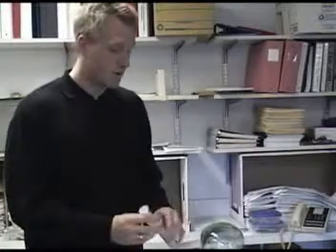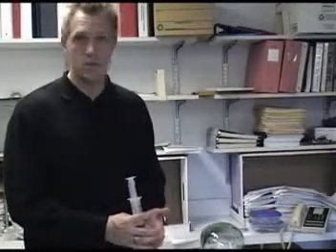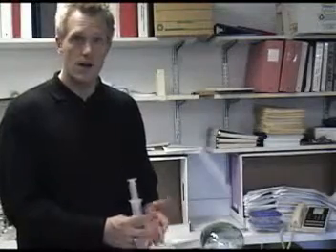And that right there is a very important point, because most times, especially as you get running with this, it'll be fairly easy to get 2 or 3 cc's back at least. However, if the patient is dried out, or if you're not wedged into the lower part of the lung, if you've retracted the catheter a little too far, you might have some issues there. So that allows you, without having to do a whole other procedure, to just go ahead and attempt another.